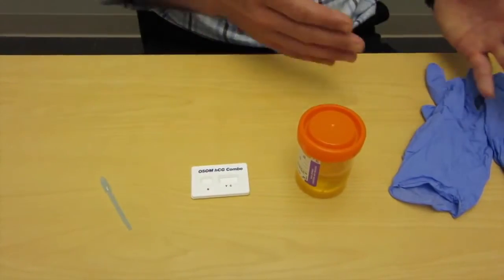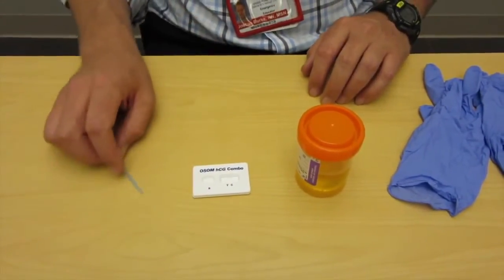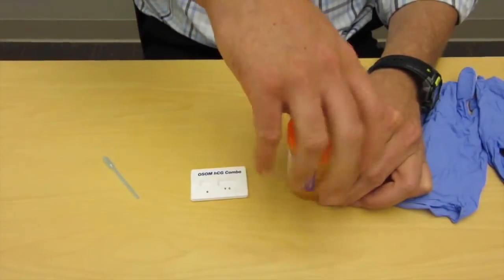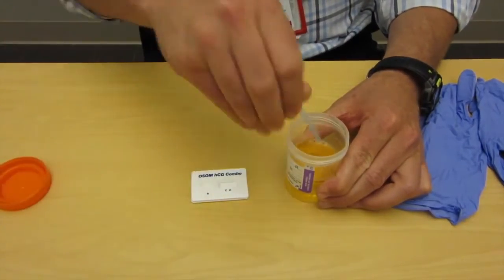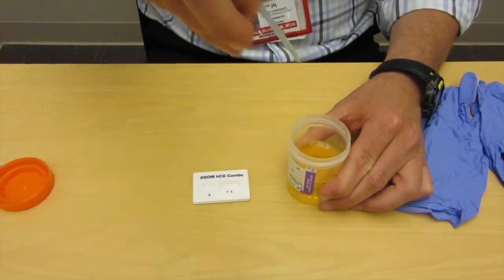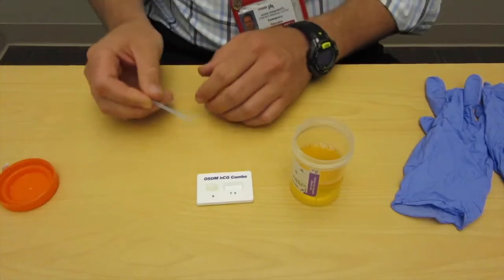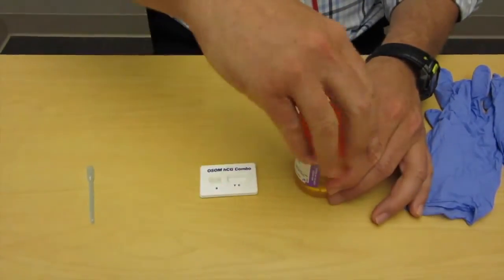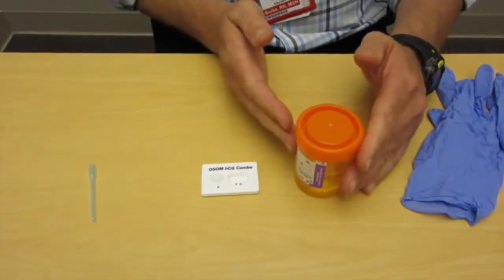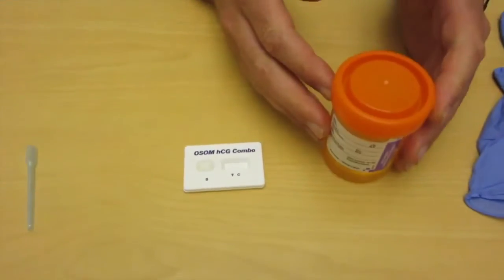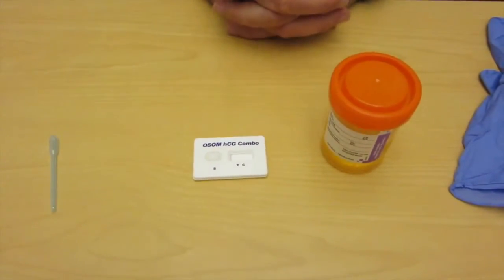Okay. So gloves and all the rest of it being what they are, we're going to then take a sample pipette, fill it up to the fill line, introduce it into the sample well, and this is not urine, just FYI. And we're going to wait for three minutes.